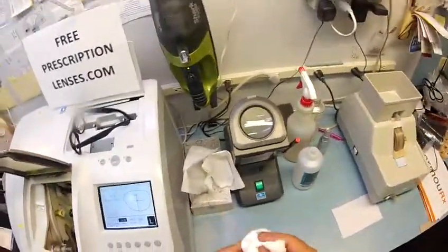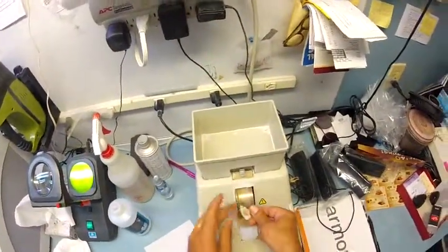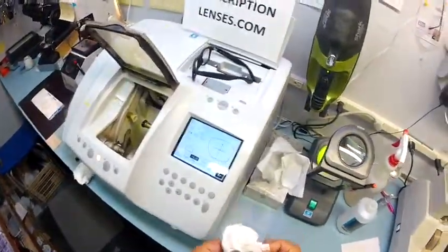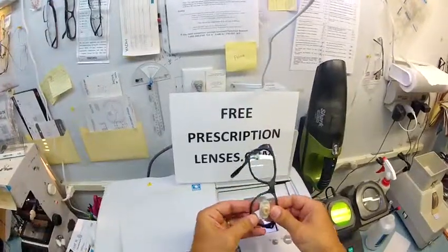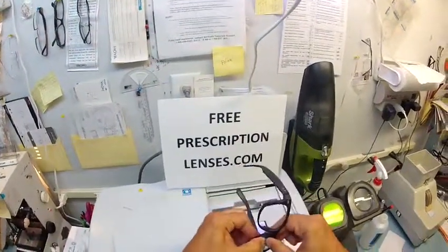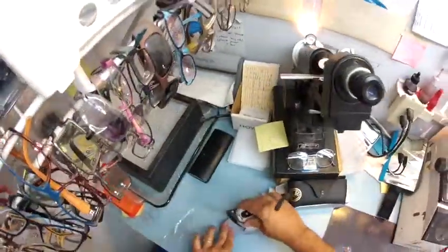So let's take this one out, dry it off, go over to the hand stone. I'm going to tuck the lens in at the outside corner, then using my thumbs I press down at the nose and it snaps in perfectly. So let's take this block off, dry your lens off, and clean up my mess.